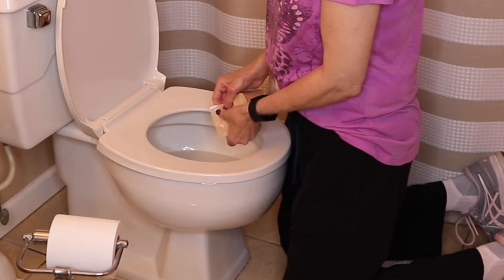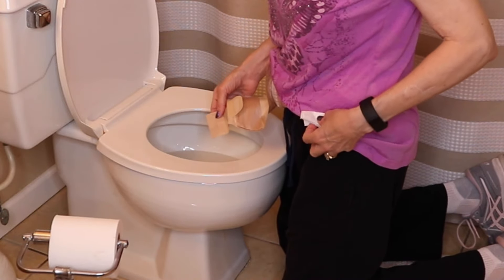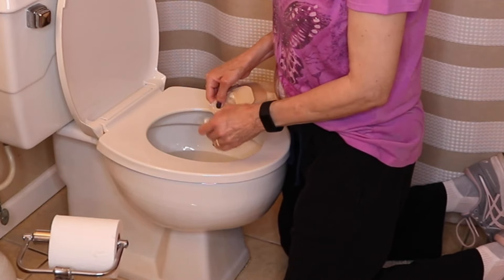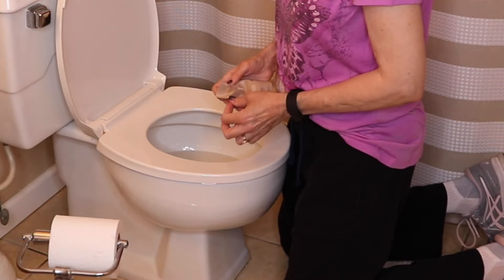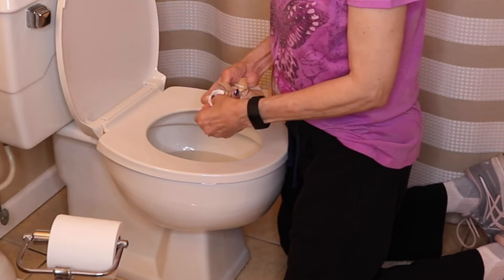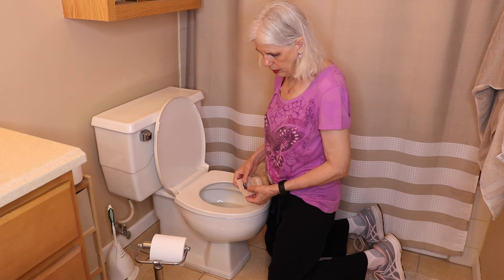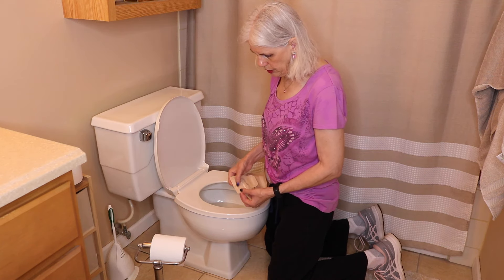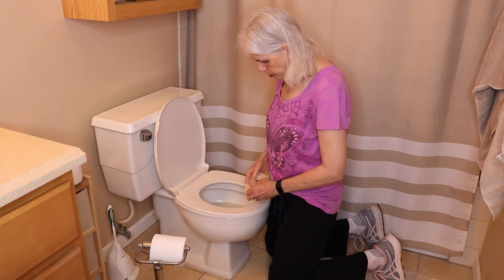At the end, wipe across the opening to make everything fall off. Then take a piece of toilet paper, fold it in half and in half again, and fold it over so it's thick enough that nothing gets on your hand. Put it over the top and wipe — that takes care of what's hanging on the end. Then open up your bag, take one square folded twice and then folded again the short way, put it inside, and wipe the whole inside rim out. I usually do that a couple of times. I just get the base area clean — anything up higher doesn't matter as long as the base is clean. Then fold it over, roll it up, and put it back into its little pouch.